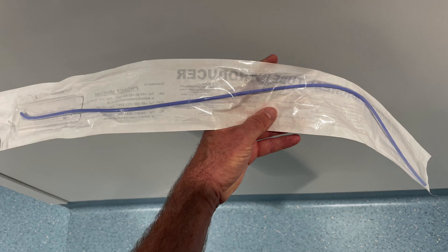The difference in quality is obvious when you take them out from where they're stored. Here's a ProBreathe showing how floppy it is.